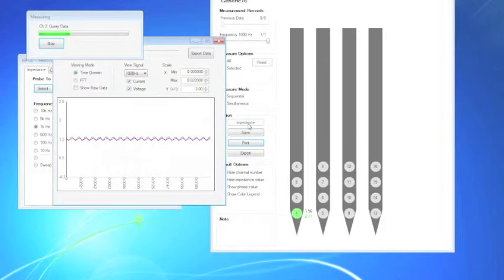If the waveform appears to be flat, you may change the gain settings in the main user interface. If they seem noisy, please check the cable connections and or the environment, as this may affect the measurements.